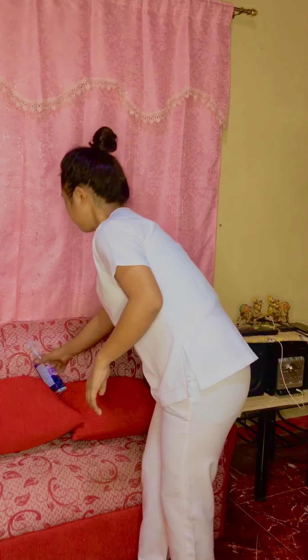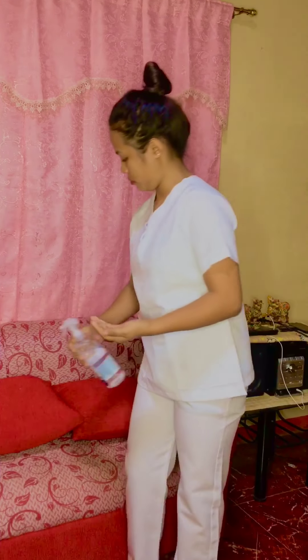And lastly, remove your face mask or mask. After removing this, you need to throw it in a trash bin. And again, perform hand hygiene. So that's how I demonstrate to you how to properly apply and remove a PPE gown, gloves, eyewear, and mask.